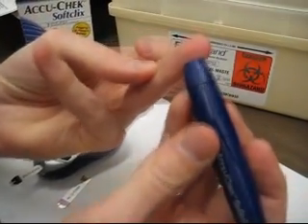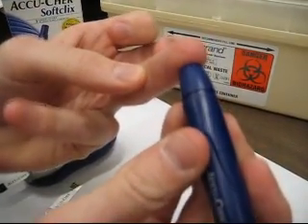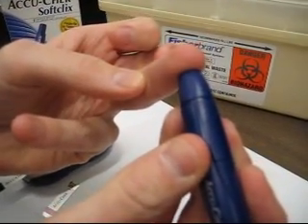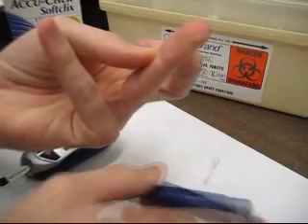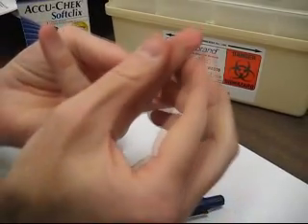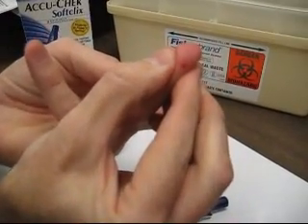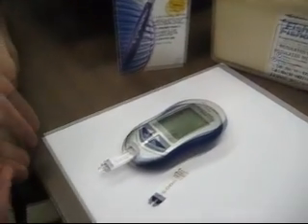Put pressure against the inside or tip of your finger and trigger the lancet device. Push on your finger to make a little blood drop.